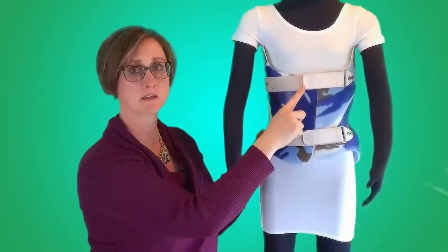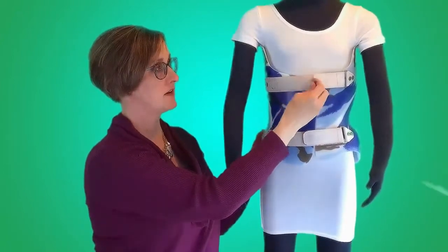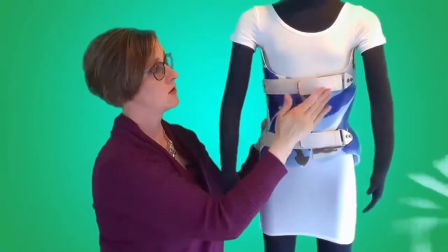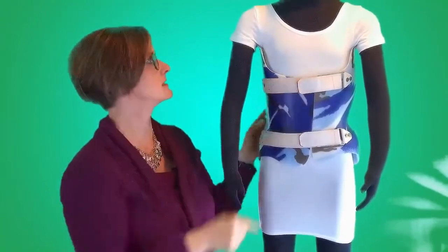Other stress points include edges of the hook and loop tape. This is very coarse, and if it touches a shirt — which could happen if your child moves a certain way — or an outer shirt over top of it could form a hole from rubbing against this.